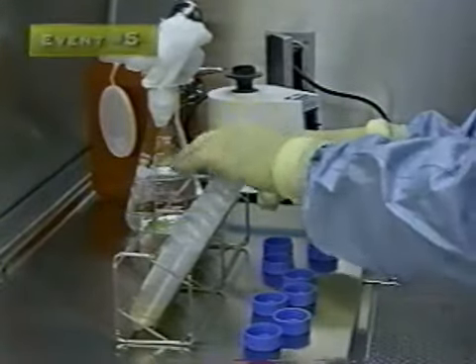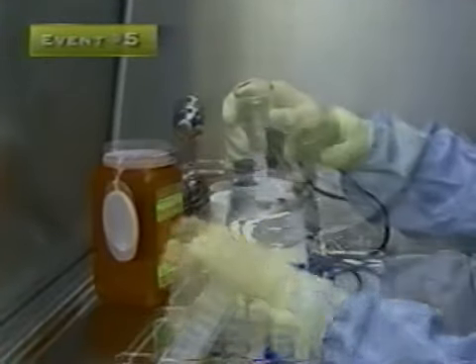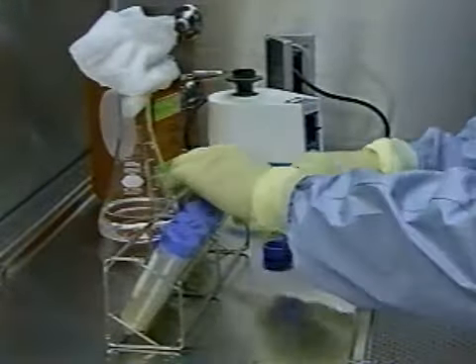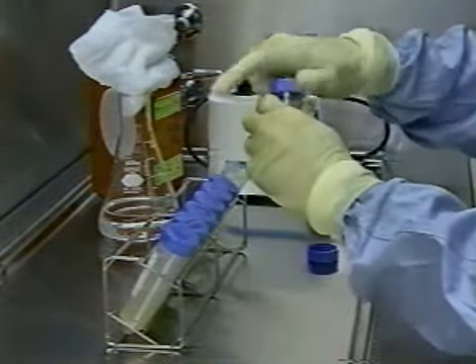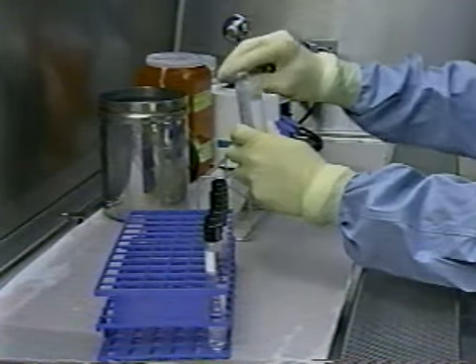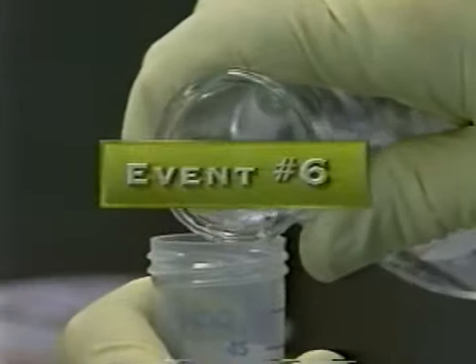And what do you expert laboratorians think of this worker's techniques? When more than one specimen-containing tube is open at a time, the stage is set for potential cross-contamination. Droplets created when working with one specimen may potentially contaminate the contents of another specimen tube or fall on the interior of the upturned caps, subsequently contaminating that specimen sample when the cap is replaced. When recapping the tubes, caps may be placed accidentally on the wrong tube. To prevent this mechanism of cross-contamination, caps should remain on all tubes except the tube on which you are working. It is critical that only one tube be open at a time and that caps be kept with the inside surface down.